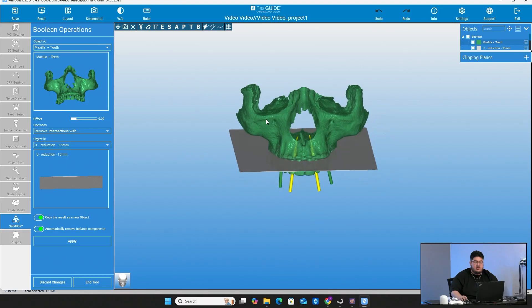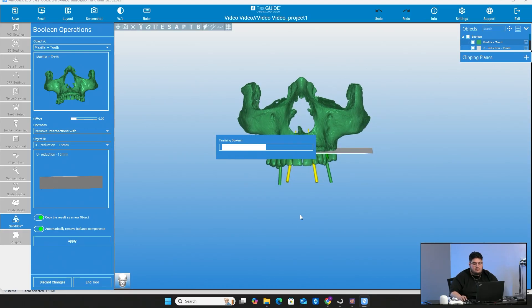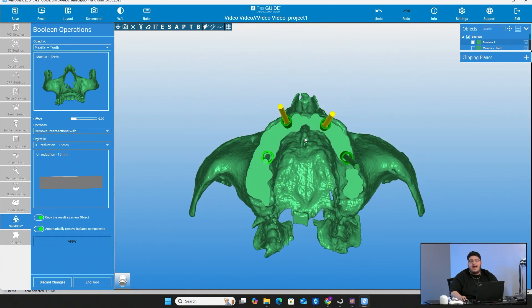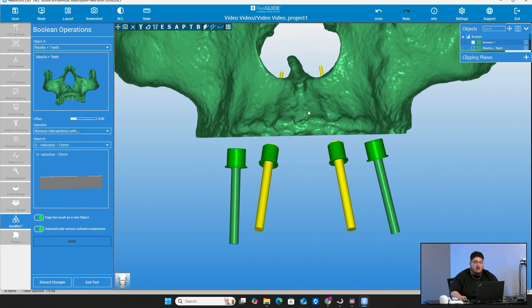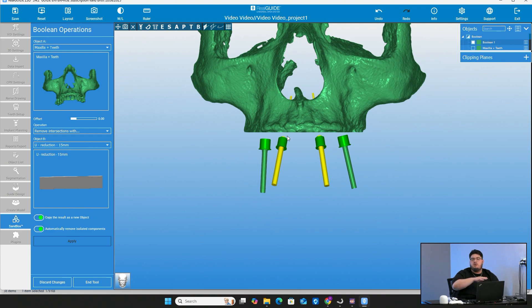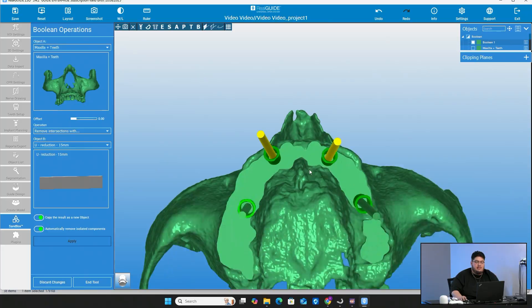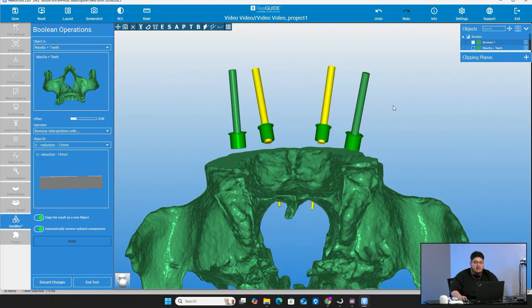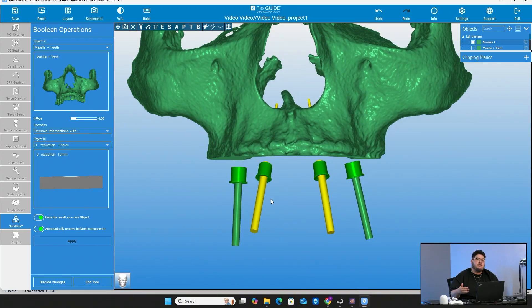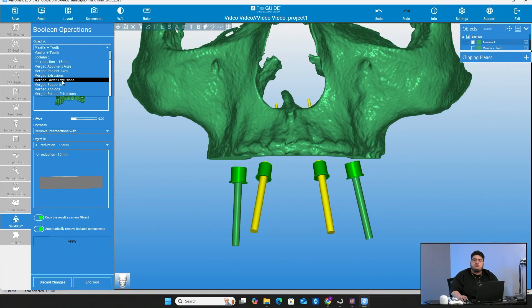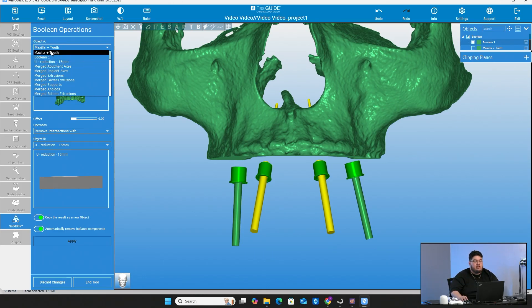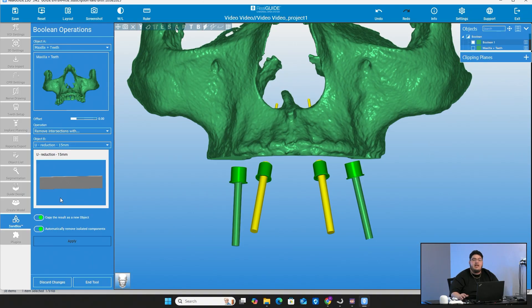Once you've done all those steps, go ahead and click apply. Once you've clicked apply, you'll see that now we have a bone reduction model. This is our representation of the bone reduction itself — and as you see, it was a perfect smooth cut. There are many different ways you can do this; you can use tools and do it in a manual step, but the line doesn't come out as perfect. I like using this step because we have a perfect reduction line straight to what we planned. It's also great for cutting other things — for example, a surgical guide you want to create in two pieces for a stackable guide.